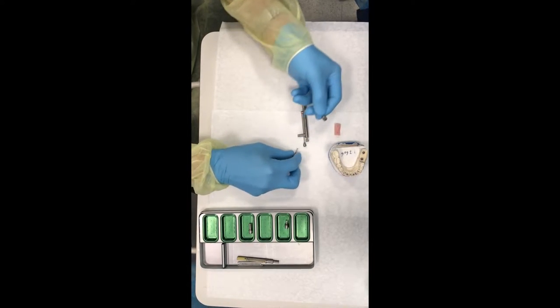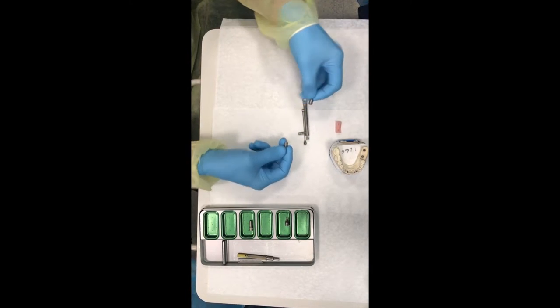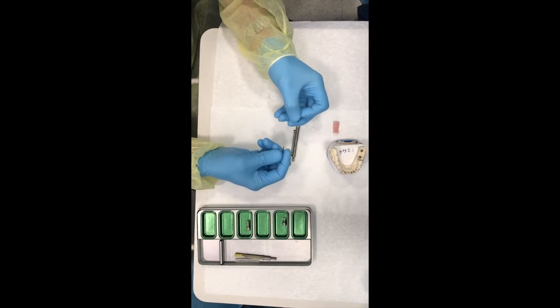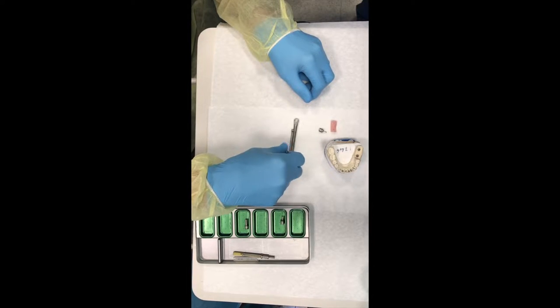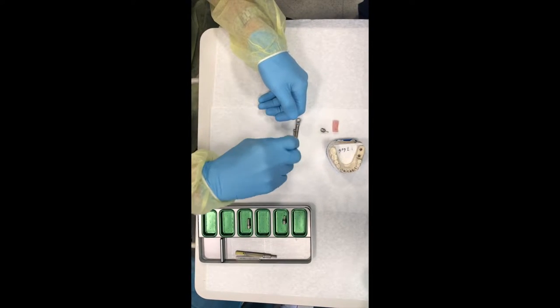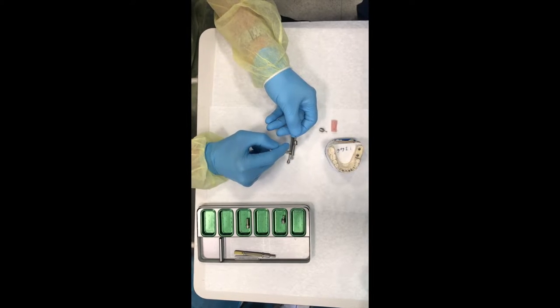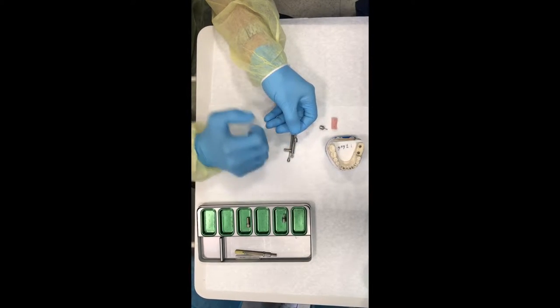These are easily inserted and removed from the Torx wrench, which I have right here. You can also use these individually. You can just, with your fingers, and just twist in things. So when we say finger tight, you just grab it and you twist it in.